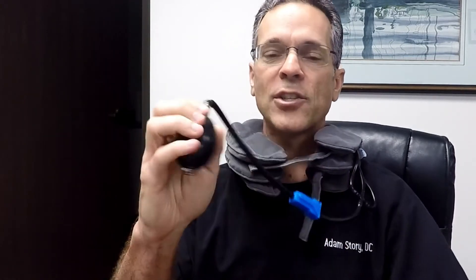What I like about it is it has this old-fashioned type of pump. I'm going to pump it up here in just a second, and it's going to start to get taller. The nice thing about this is you can modify the size, the shape, or how tall you want it based upon how much you pump it up.